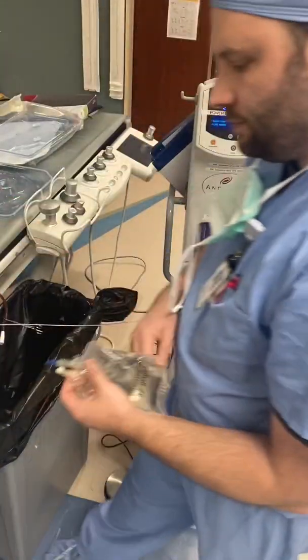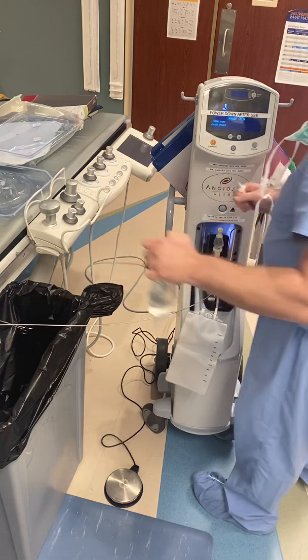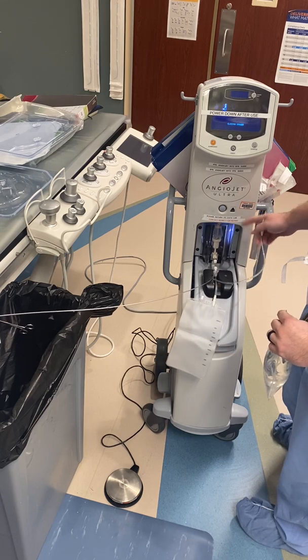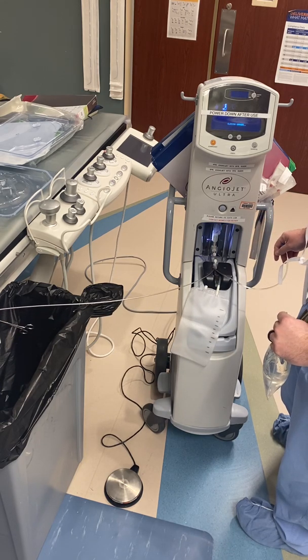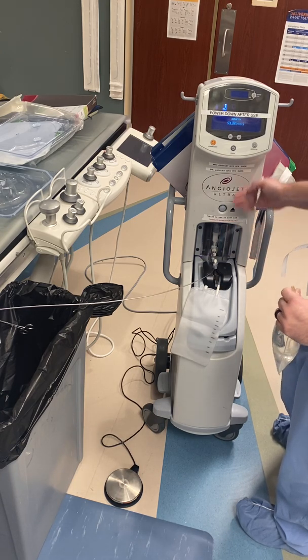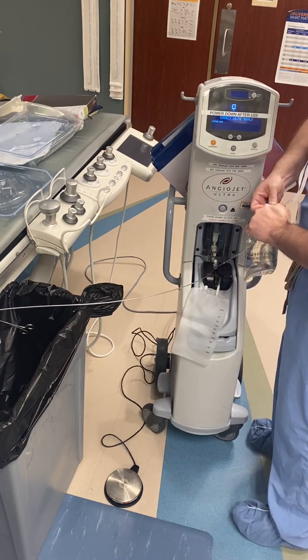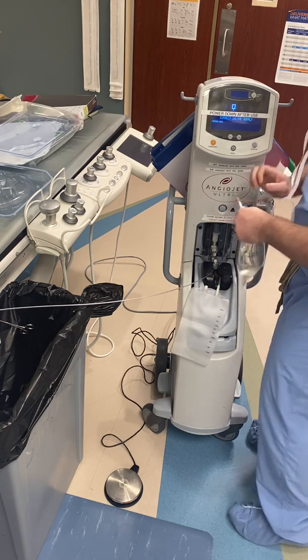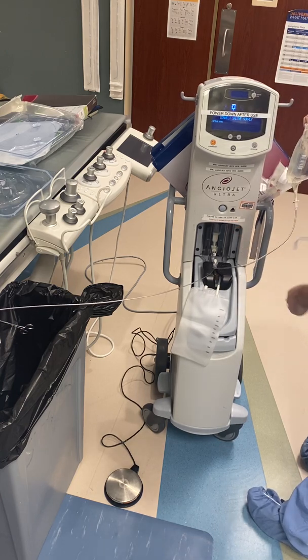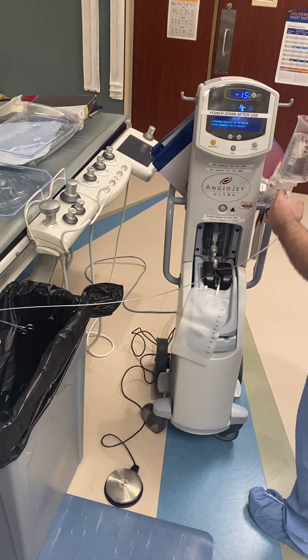Once you have this part in, you can go ahead and hit what I call the 'belly button.' You'll see a red light flash — that means it read the catheter. It's going to come up with the catheter type on screen. Go ahead and spike the fluid, turn that up, and it'll automatically start pulling and running the pump to prime down to that part.